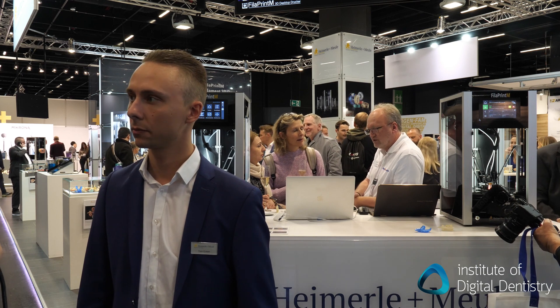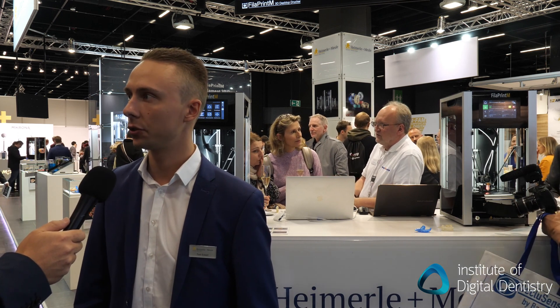So why a 3D printer from being a gold and silver refinery? Since 50 years we sell dental products in Europe, and now we want to start to go a digital way, so we started with our new 3D printer. Are these printers aimed at a dentist as a chairside solution or for dental labs? I would say both. It's a chairside solution, but mainly we want to sell them to dental labs for crowns, partial dentures, trays and casts.